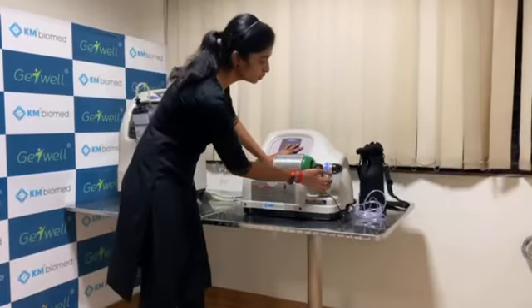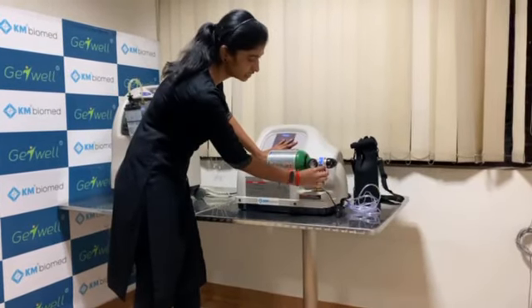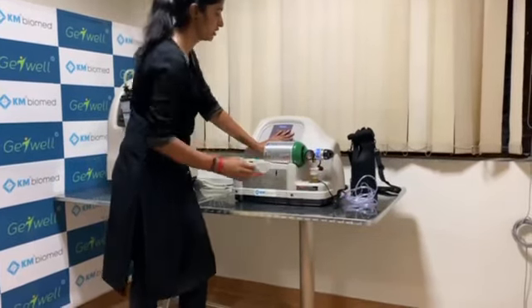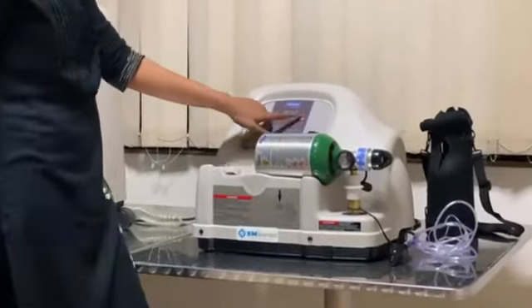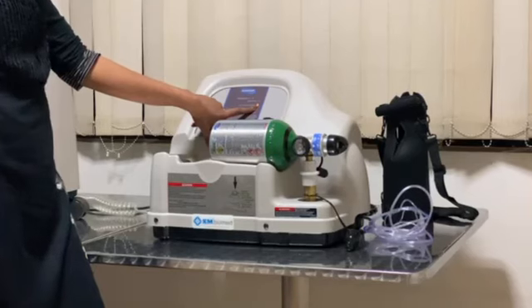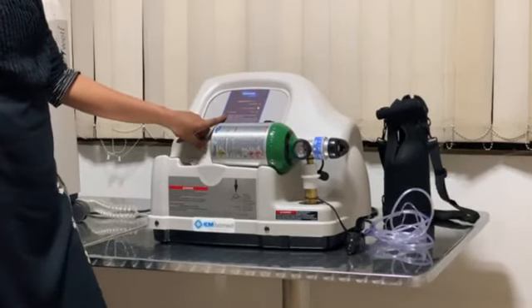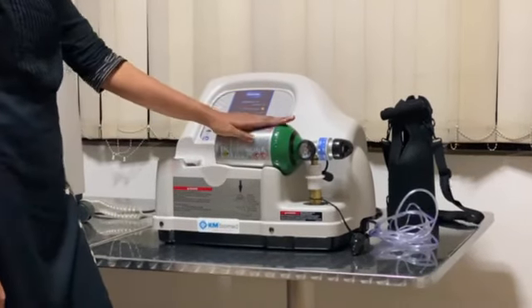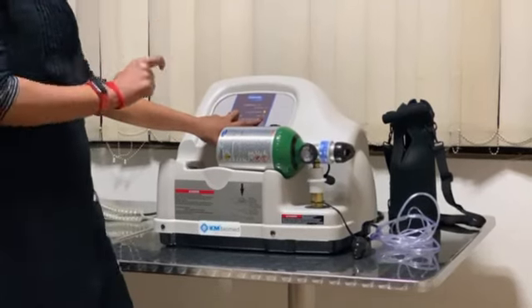You also need to check this triangle, which needs to be in the off position before starting to fill. Once it sits on the machine, you will get a beep sound and you will see a yellow light near the 'zero to below normal' indicator. It will glow for 3 minutes and then it will switch to 'filling', indicating that the cylinder is being filled. Once the cylinder is filled, you will see a green light near the full symbol.